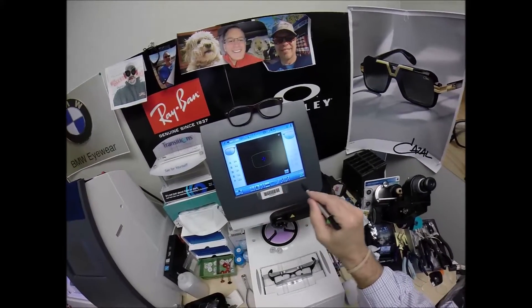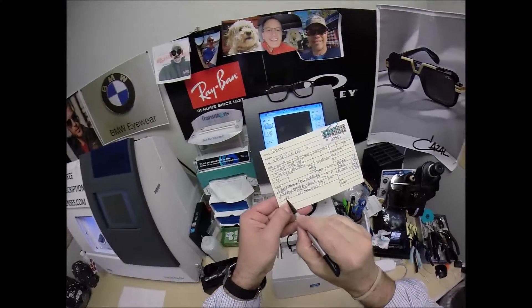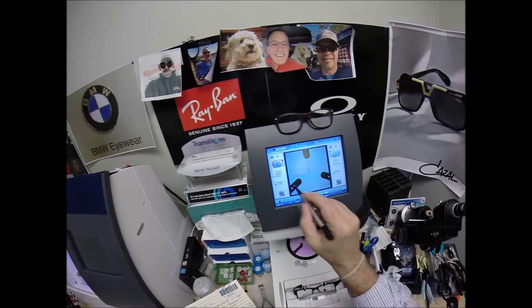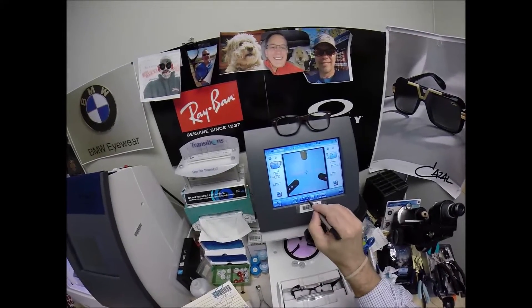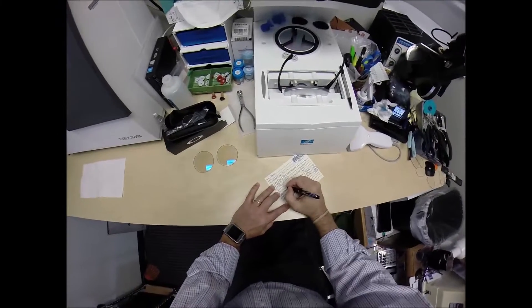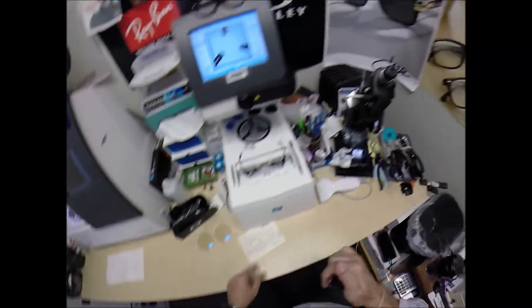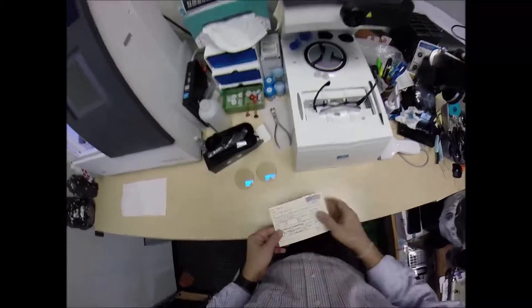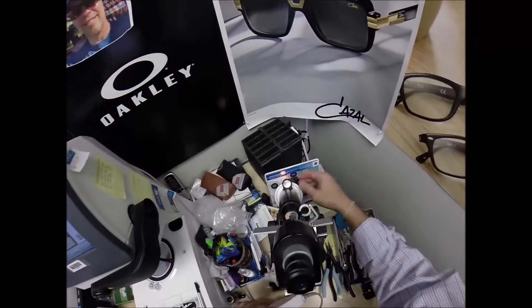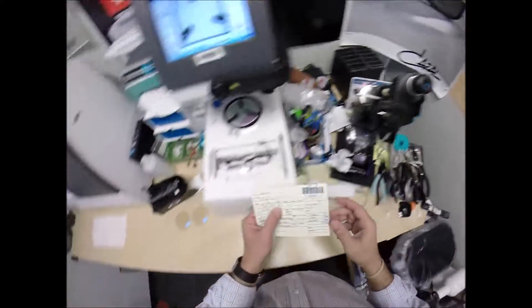That is the shape that I'll be cutting. Moving on to the next screen — we're going to add your pupillary distance, which combined is 60, divided by two is 30. I'm going to tap the minus button until we get to 30. I want to raise the optical center up two millimeters to 18. I'll mark that on your temporary record card and then update that on your permanent record card. Now your right eye reads minus one, minus 75 at 100. Turn the axis wheel to 100.